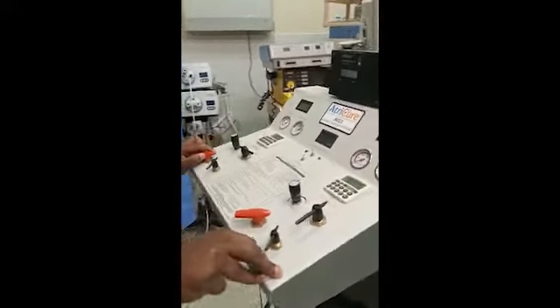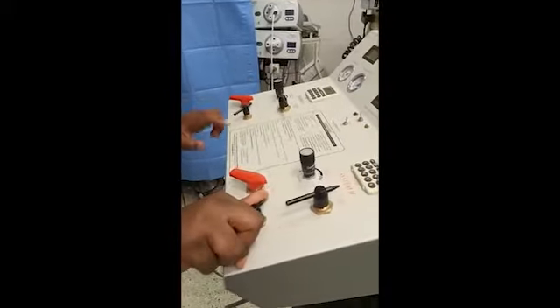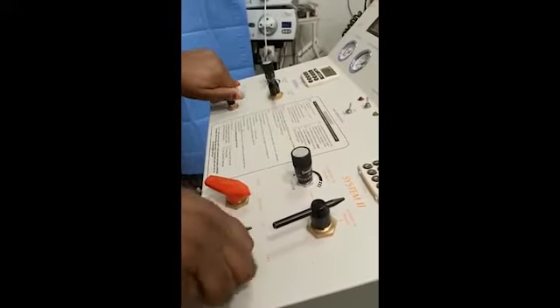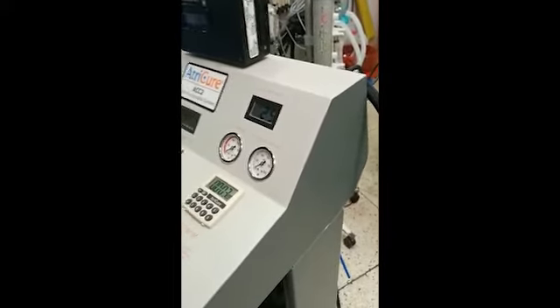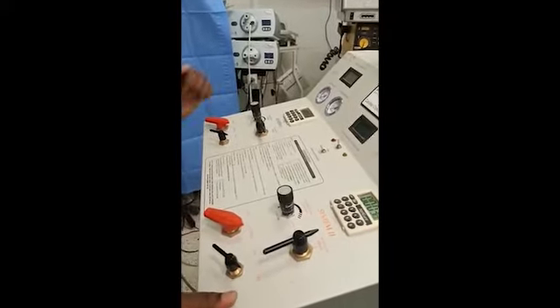To shut down the system, first remove the probes. Then turn off the cylinder, and use the on/off knob repeatedly until the pressure gauge reads zero. Turn the system switch to the off side, then turn off the main meter — at that point the system is fully shut down.